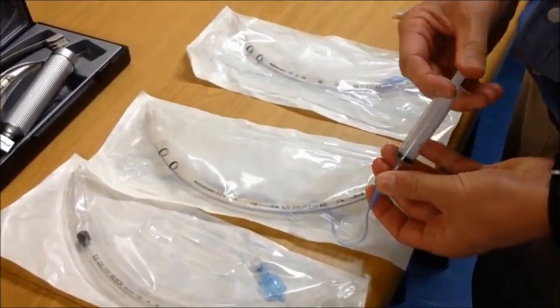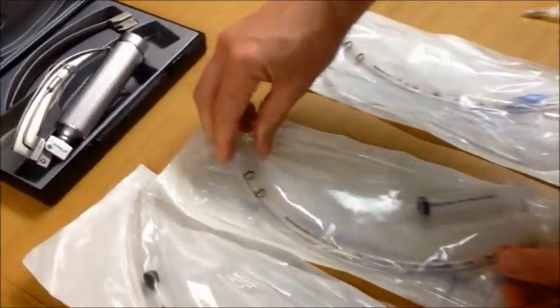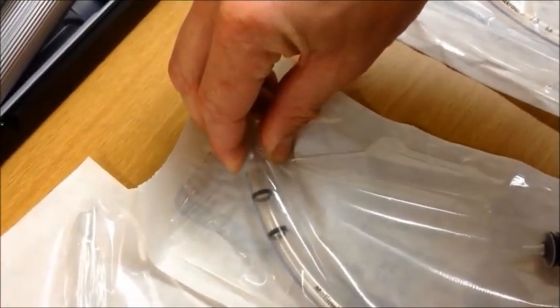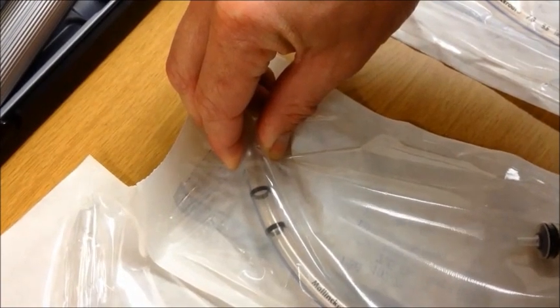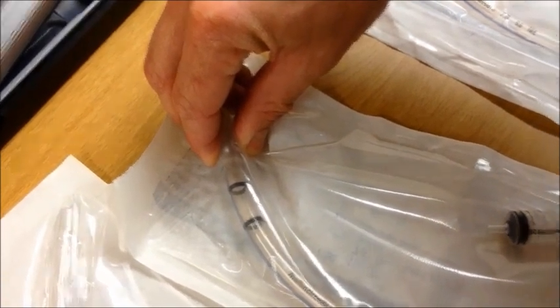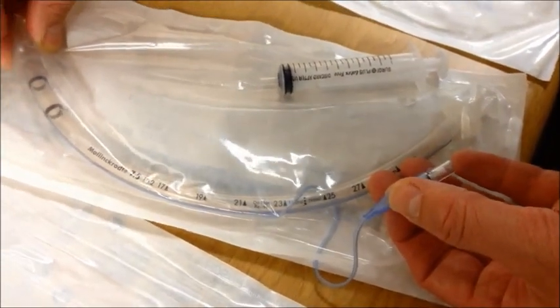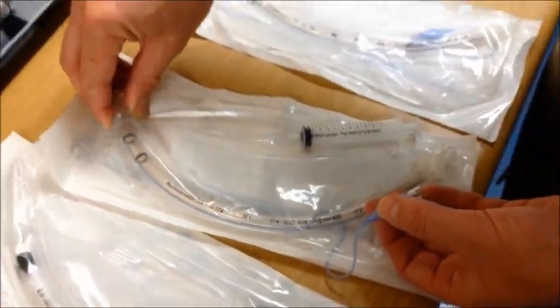Inflate the bulb while still inside the packaging and check it inside the packaging. Sustained pressure on the cuff for a few seconds and making sure that the pilot bulb remains inflated without losing any pressure in the cuff should be sufficient.